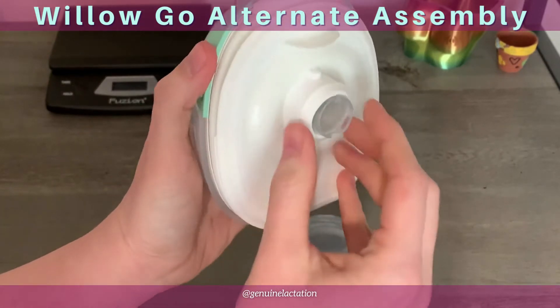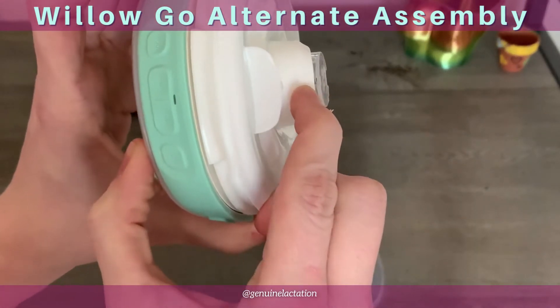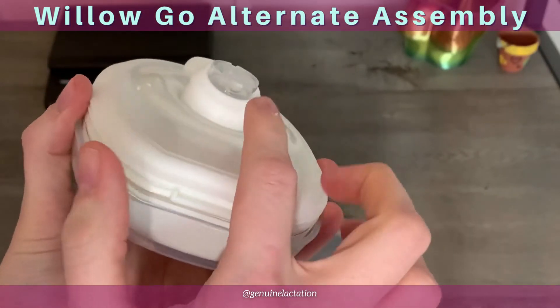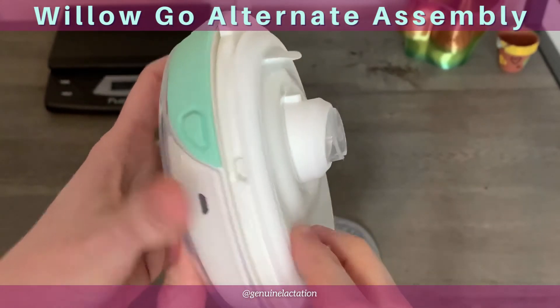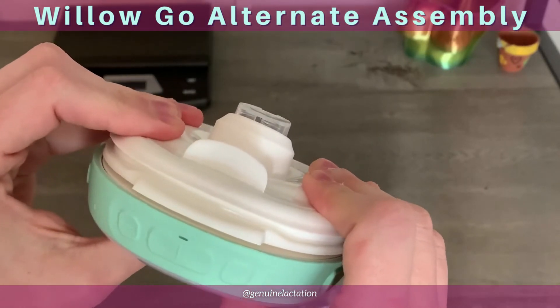That's going to let us see back here to confirm — the top hole needs to be slightly out, and the bottom hole needs to be completely through. A lot of back flooding issues come from this back hole being partially covered or not through at all. So make sure it's all the way out — really give that a good press.